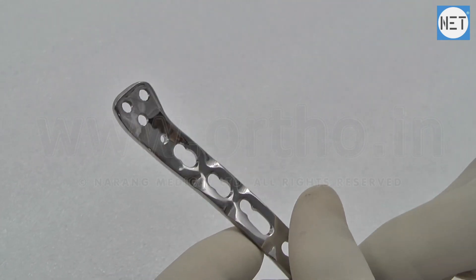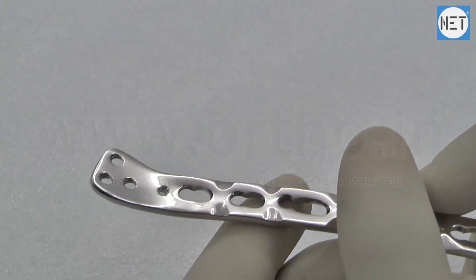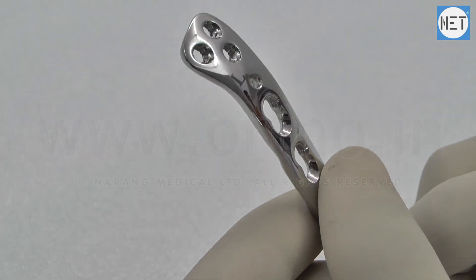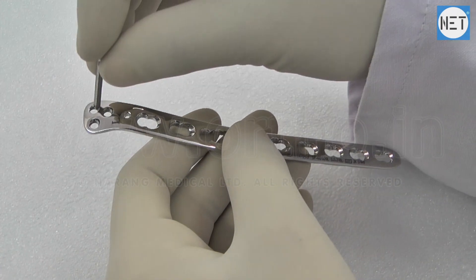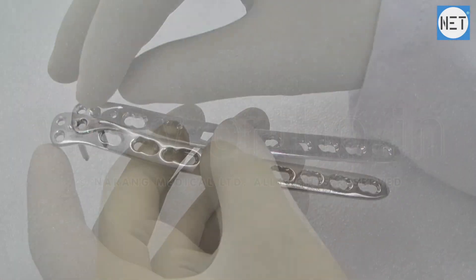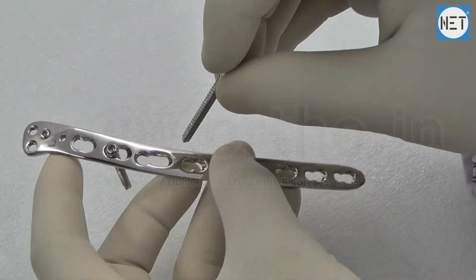The head of the plate supports 2.7mm safety locking screws and shaft of the plate supports 3.5mm safety locking, 3.5mm cortical and 4mm cancellous screws.